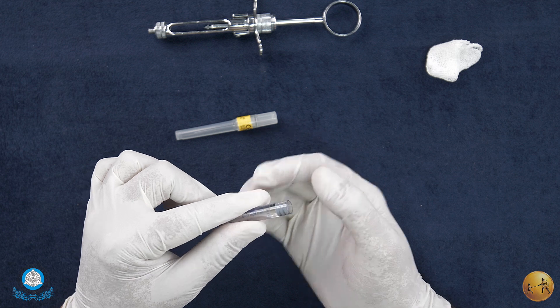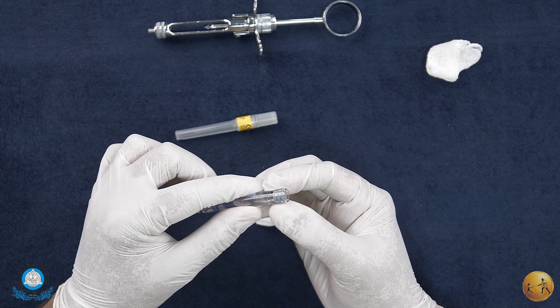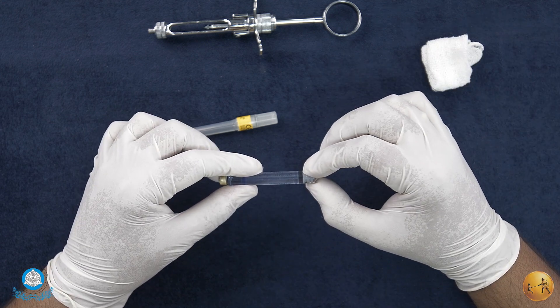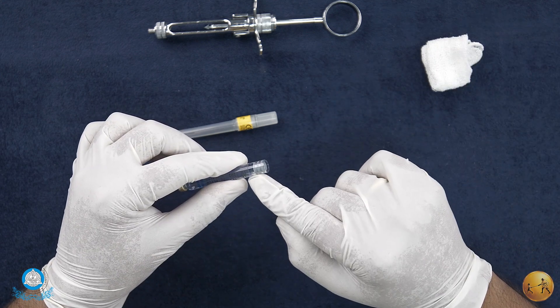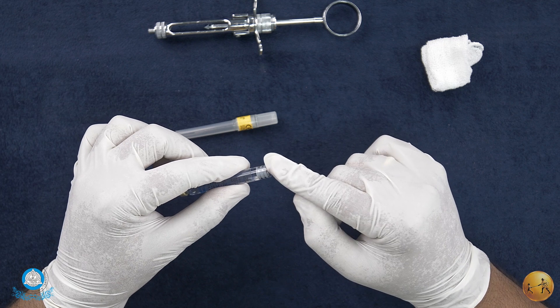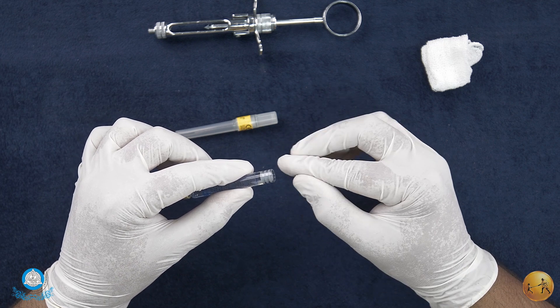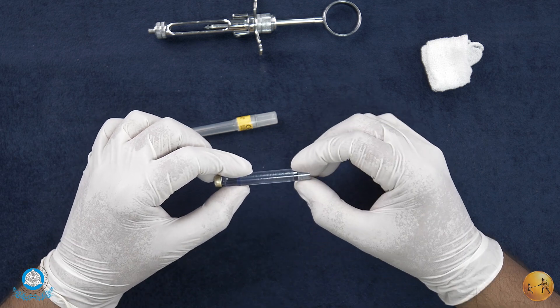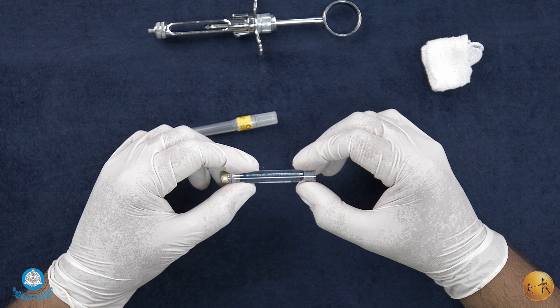That is by design. Also note that in case you end up freezing these cartridges, the stopper is going to move up and may actually jut out of the rim, which is a bad sign. That should be taken as a sign that this cartridge should not be used in the patient.